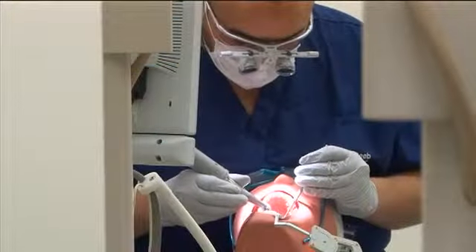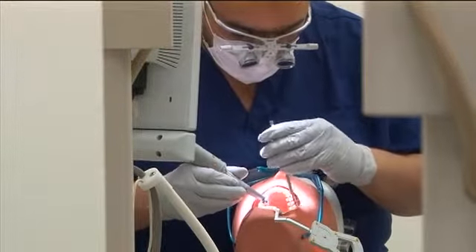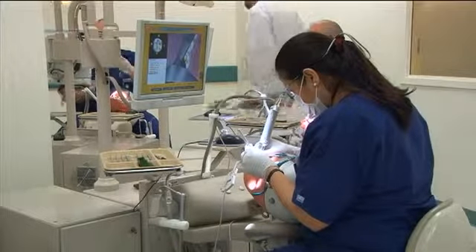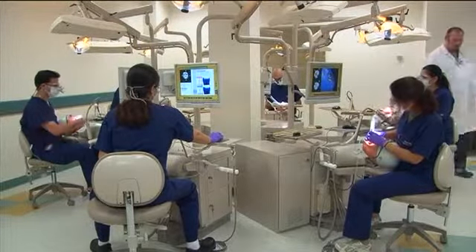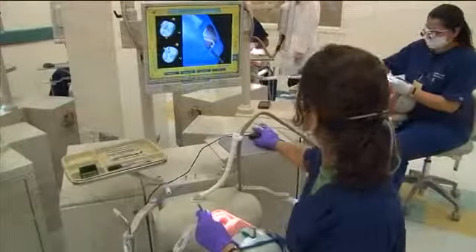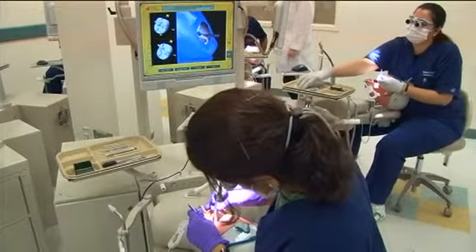Our students, I think, really like DentSim. They like to work at their own pace. They like to be able to evaluate their cutting and their psychomotor skills independently, without someone having to look at their work and evaluate it and give them feedback, someone as faculty. Also, the faculty appreciate that because they can see everything very clearly and very accurately on the screen as the students are cutting the preps.